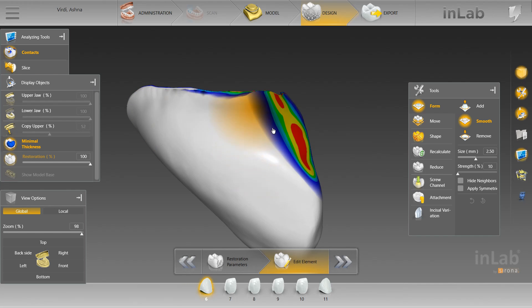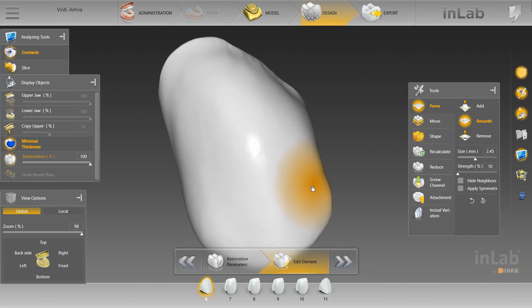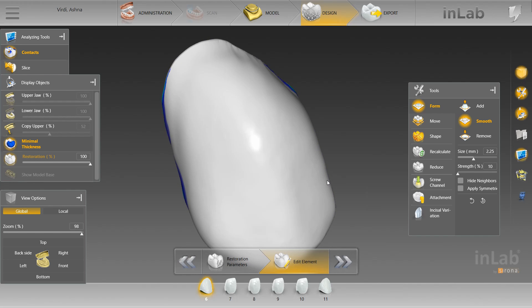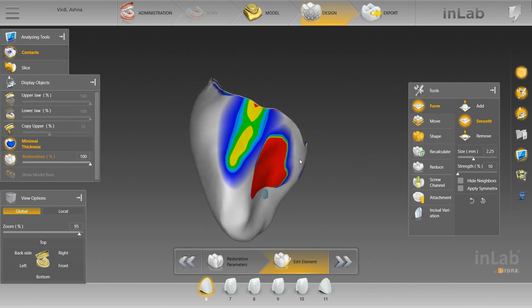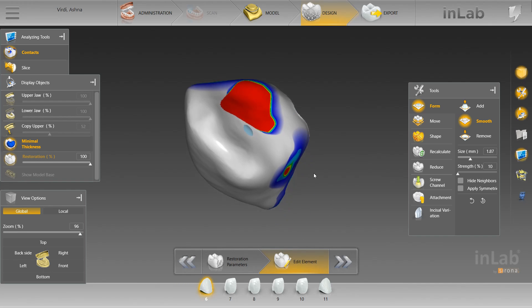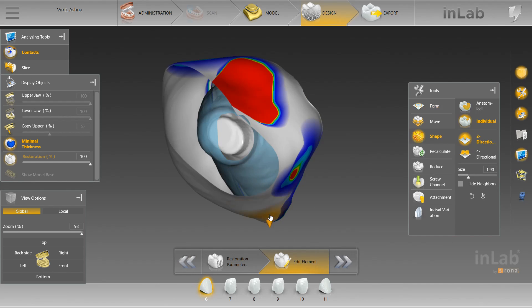Remember, keep the strength low so that you have control of what you're doing. We're just going to fix this little area right here — you can see how it's kind of lumpy. This cuspid is overlapping the lateral slightly just because there's very limited space. And there is a discrepancy in the scan that I noticed, so we're going to leave this contact somewhat red right there and just hope that we get it right.